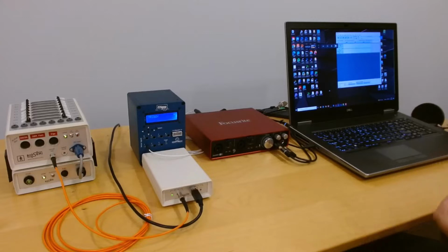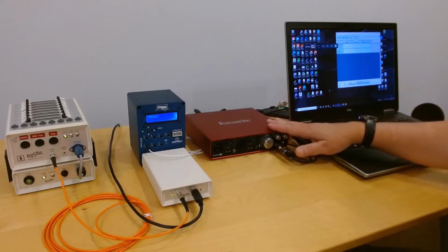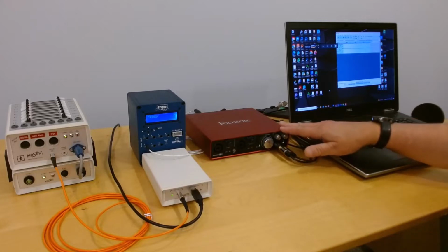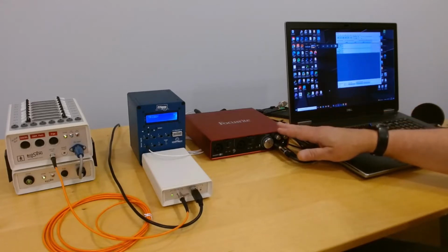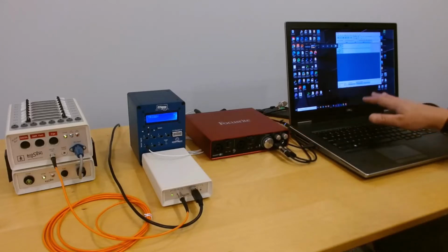And you can see in that video that the timing of Triggy partly depends upon the quality of the audio interface. In this example, I'm using a high quality audio interface that generates good quality sound. It's not necessarily one of the preferred sound devices for a presentation because it has a USB interface, so there may be some reasons why it isn't going to behave as predictably with respect to other parts of the computer.